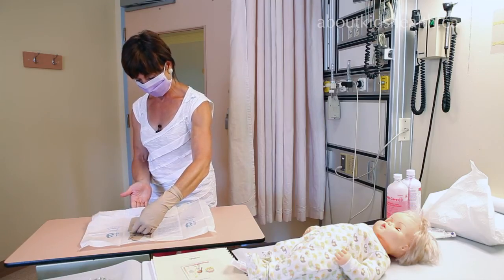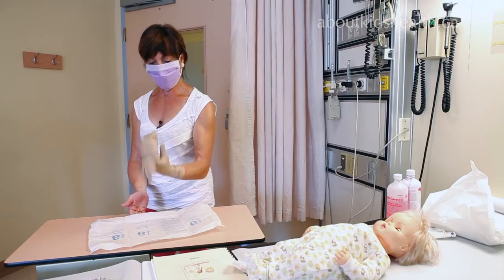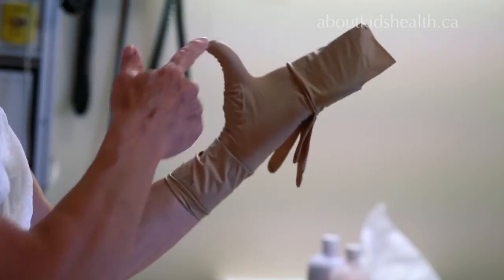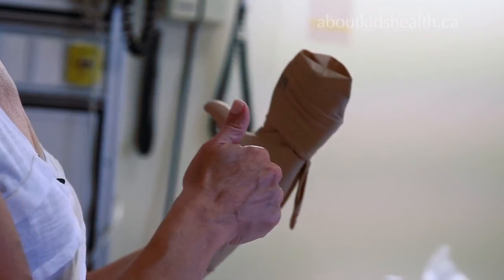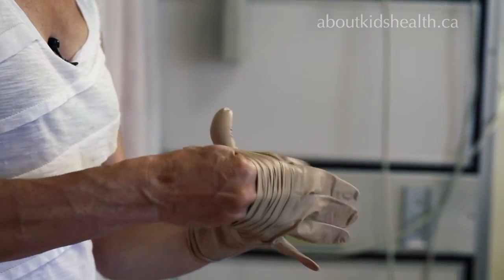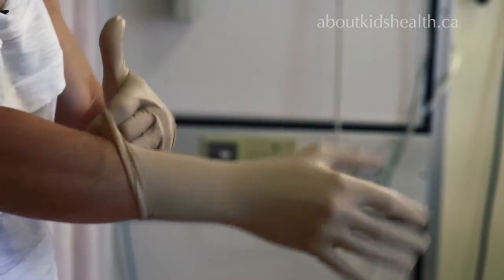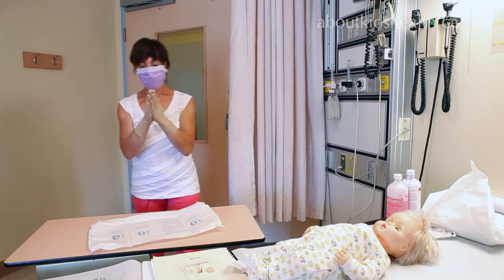Instead, tuck all four fingers under the cuff of the second glove like this. Get your thumb out of the way, spread your fingers to give the cuff a little stability, then again find the thumb and keep your own thumb out of the way as the other fingers find their way into their respective slots.